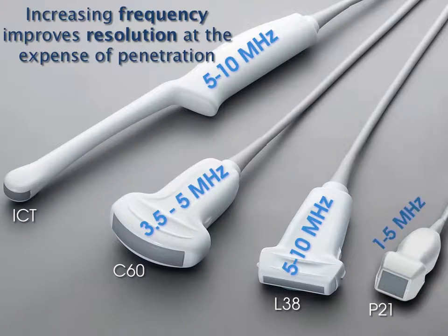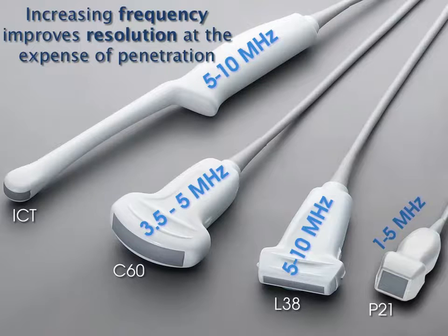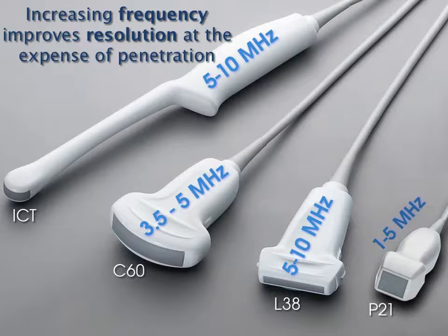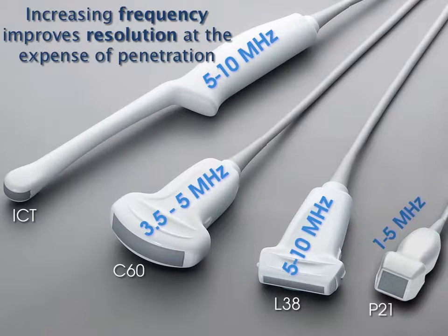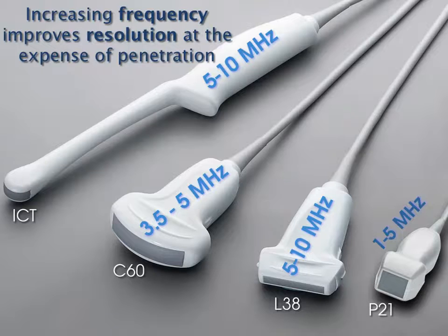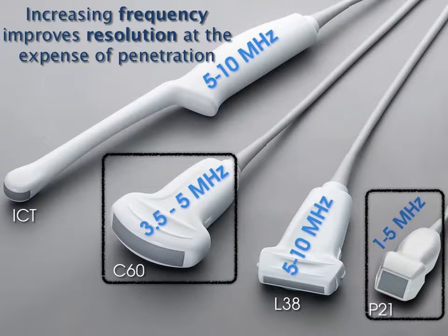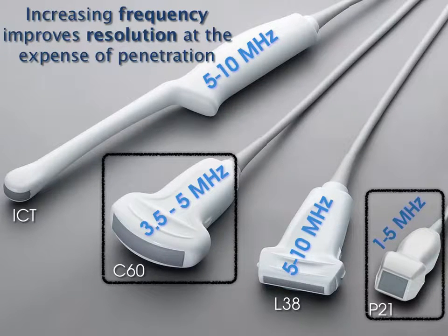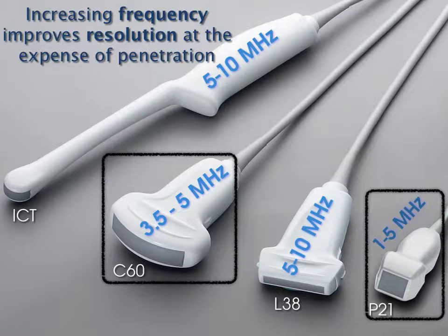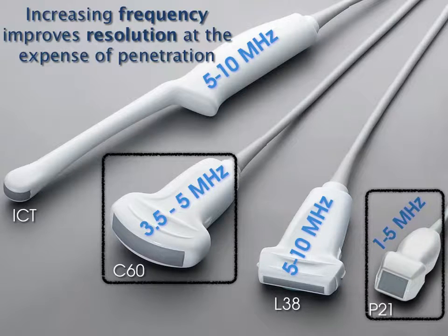Which transducer do we use to image the bladder? When you increase frequency you get better resolution at the expense of penetration. The bladder is in a distant location in the body, not right up against the skin line, so we need a probe with low enough frequency to penetrate—either the C60 or the P21. Most of our machines have the P21, and it looks fine for the bladder. The C60 looks a little prettier with more crystals, but either can work.